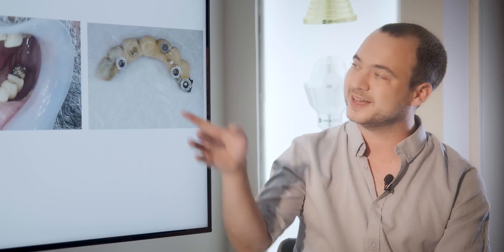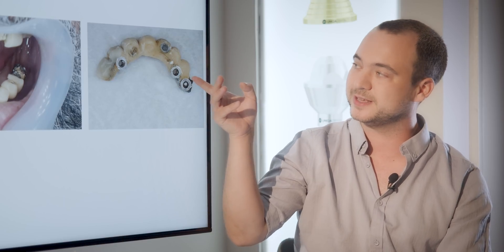If it were a different case, maybe we could consider adding an implant right next to the buccal one and just not use the buccal one. In this case, we can't add implants. We must use this implant because you can't have that many crowns without it — it would probably break. You have only four implants here. It's quite a problem because on one hand you don't want a buccal screw channel, and on the other hand you don't have any options.